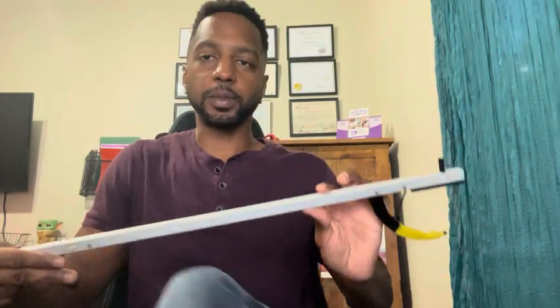A reacher is very handy to use in practice. We use this a lot as occupational therapists to help train a client how to get themselves dressed again after an impairment or after a surgery as well.